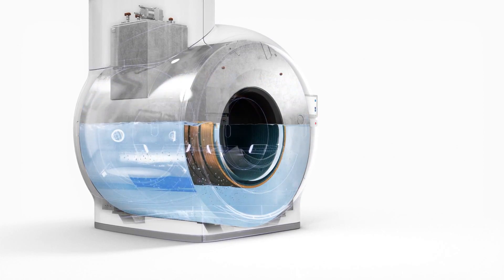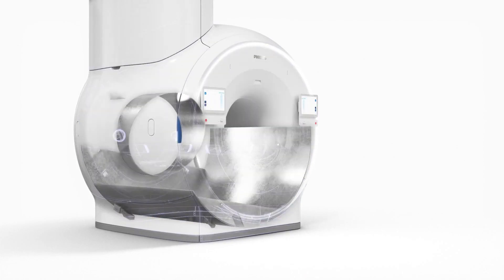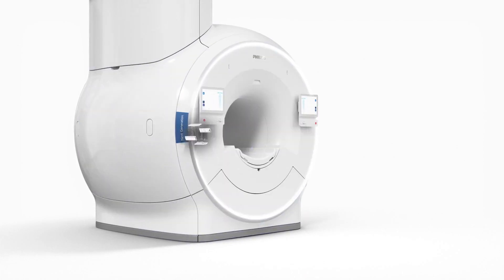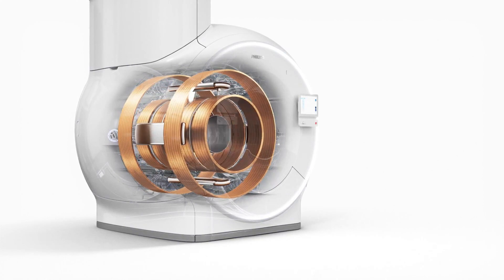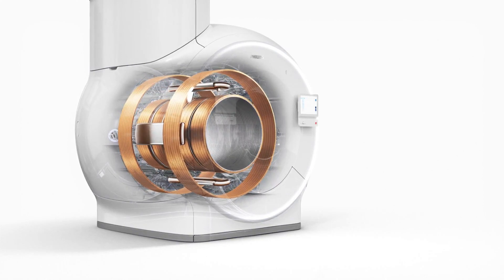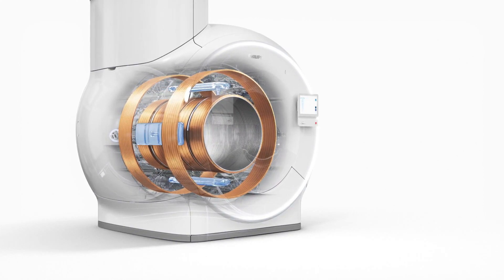Therefore, when the freelium technology is integrated into a commercialized product in the future, it could make MRI more accessible and less expensive to site and operate.